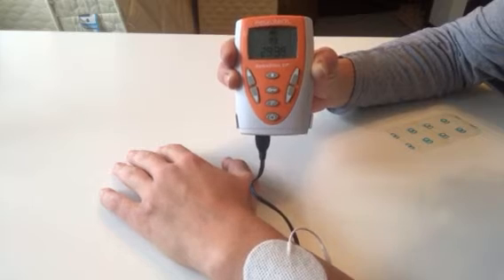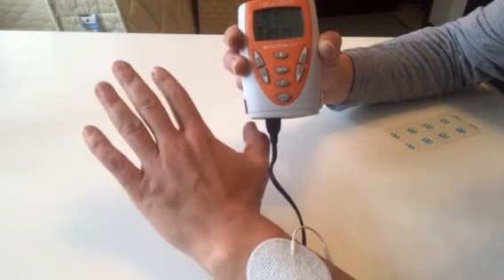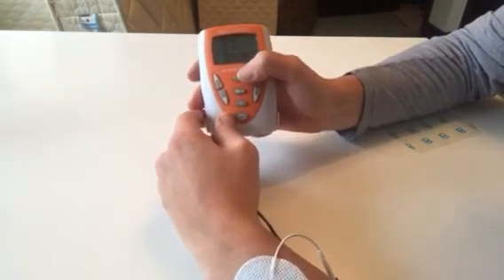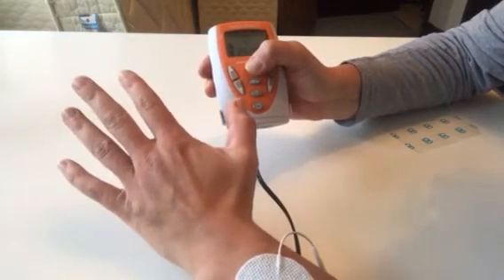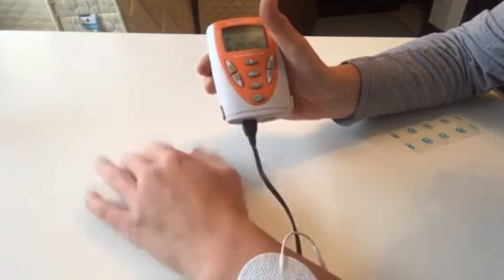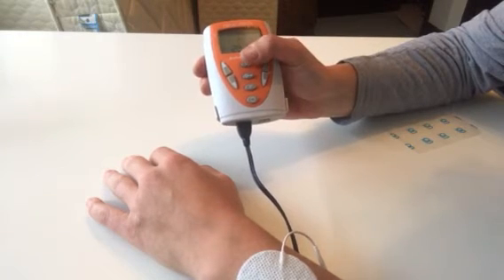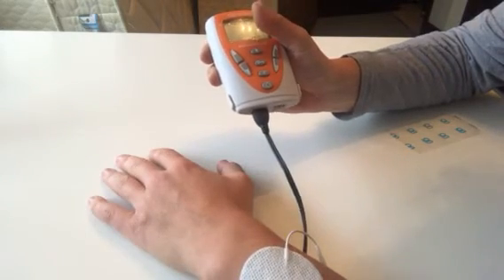If I want to override this to tie into a task and control exactly when the stimulation comes on, I've got the option of pressing the top button, which is a trigger button. The whole time my thumb is on it, stimulation is happening. When I take my thumb off, it stops, and won't restart until I press the trigger button again.